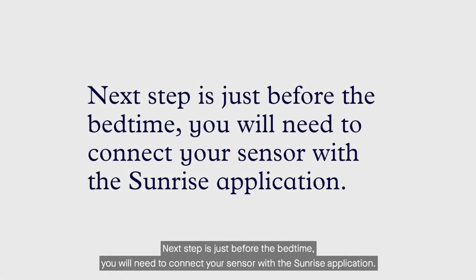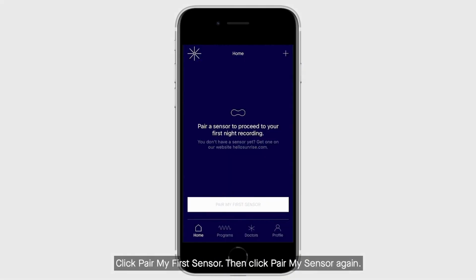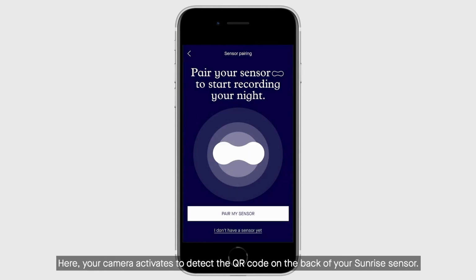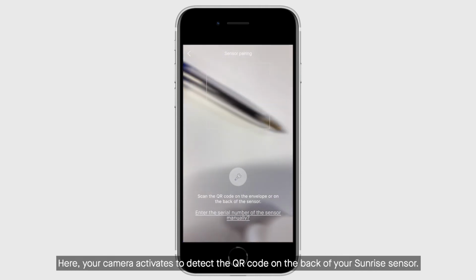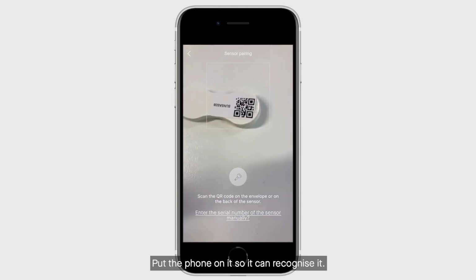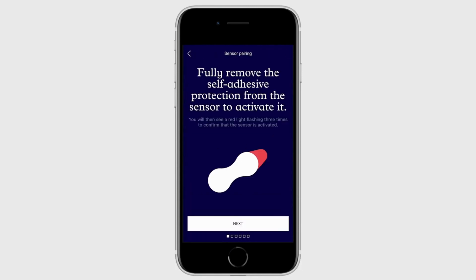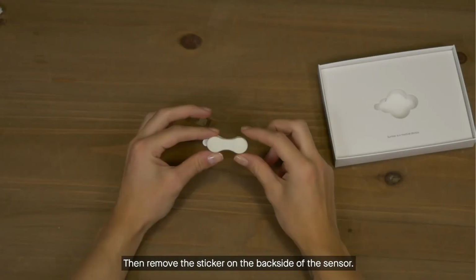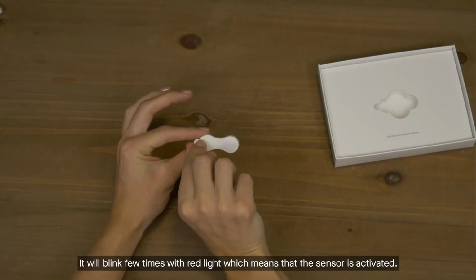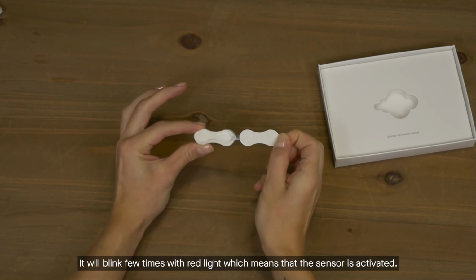Next step is just before the bedtime. You will need to connect your sensor with the Sunrise application. Click Pair my first sensor, then click Pair my sensor again. Here your camera activates to detect the QR code on the back of your Sunrise sensor. Put the phone on it so it can recognize it. Then remove the sticker on the back side of the sensor. It will blink few times with the red light, which means that the sensor is activated.